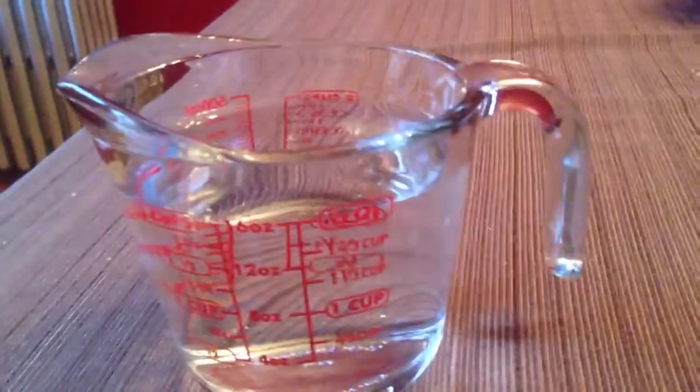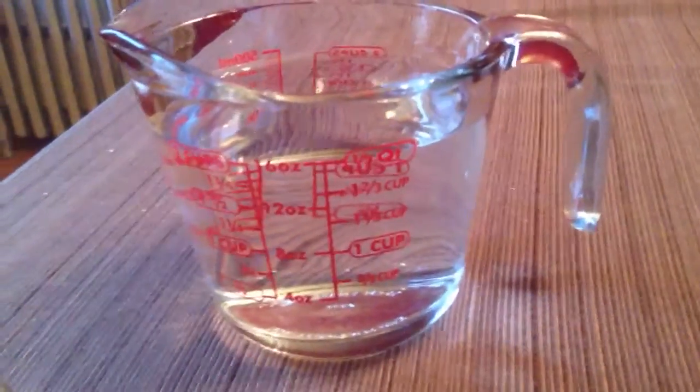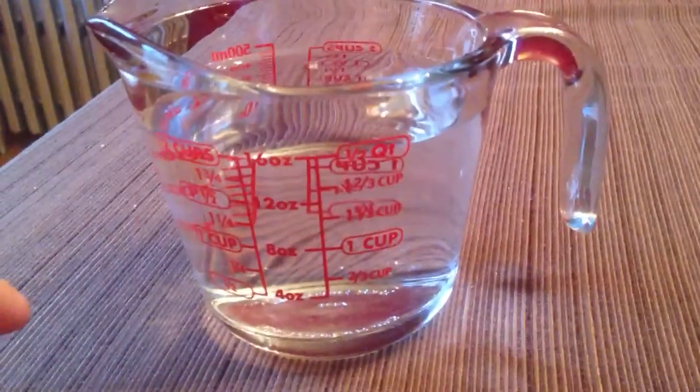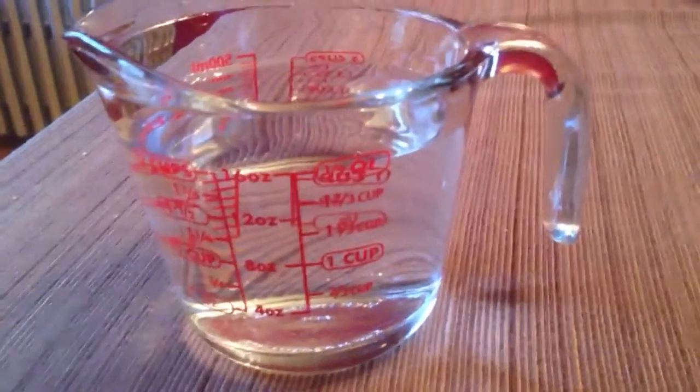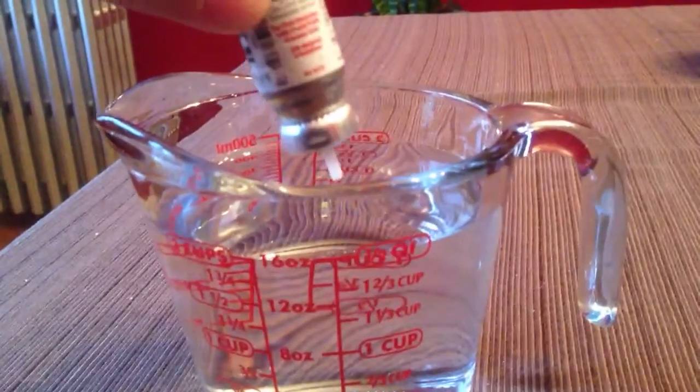Now I saw that you can do a float test to find out how much medicine you have in your albuterol inhaler. So I'd like to take a test and here is my old one.